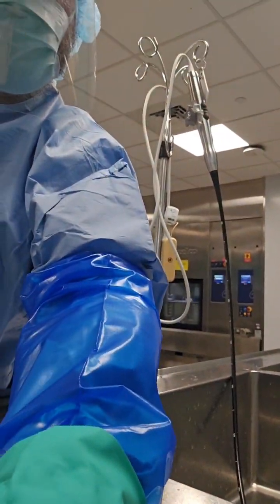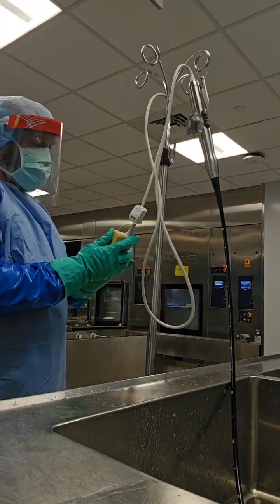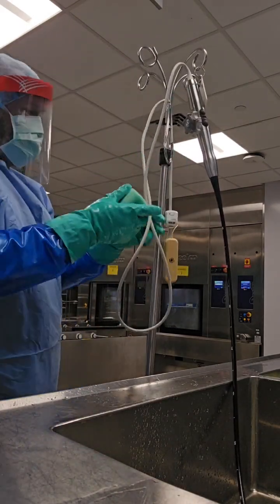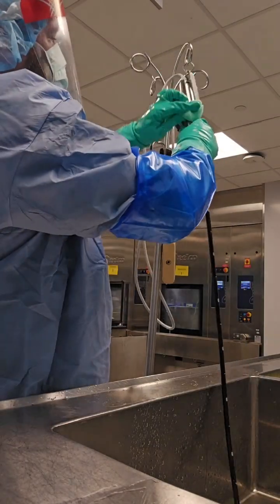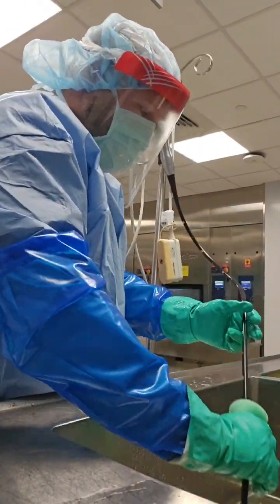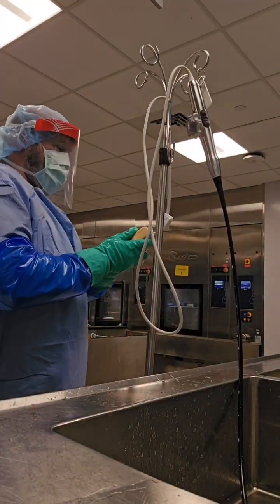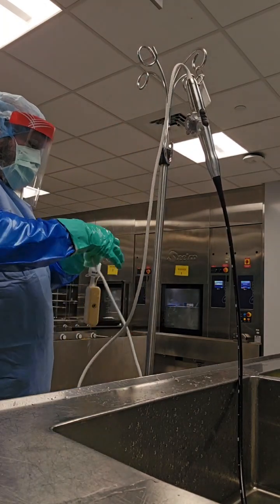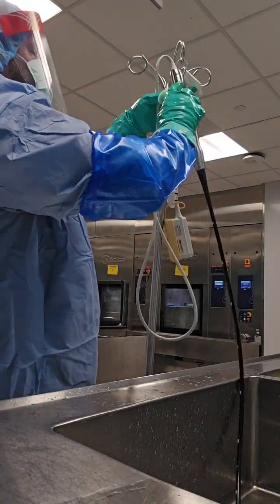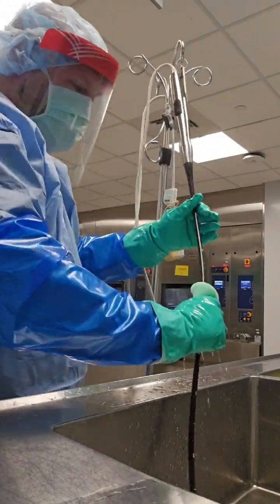Once you've used the enzymatic, go over to your rinse sink and perform the same rinsing method. Use a sponge moistened with water to wipe off the device — you're not spraying or running it under water, just using a moistened towel or sponge to remove the detergent. Do several passes to cover every surface, because dried-on detergent can damage your device over time and can also interfere with the high-level or intermediate-level disinfection that will be performed on the handle and connector block.